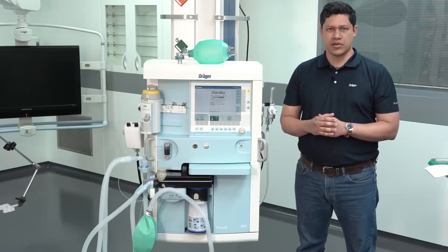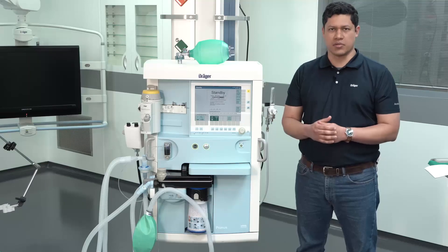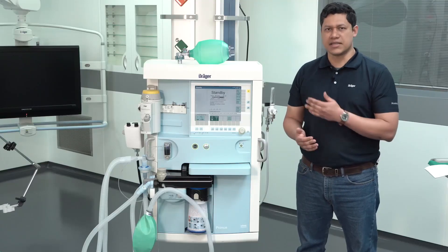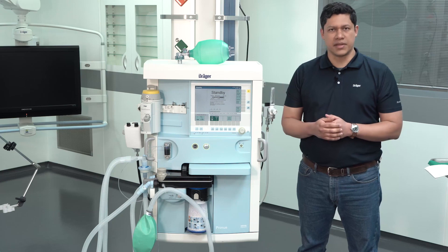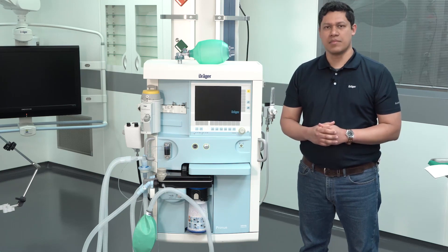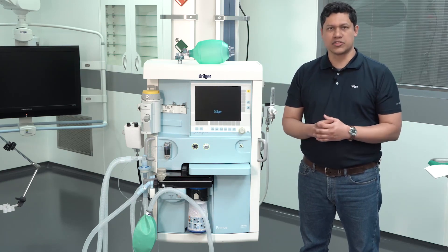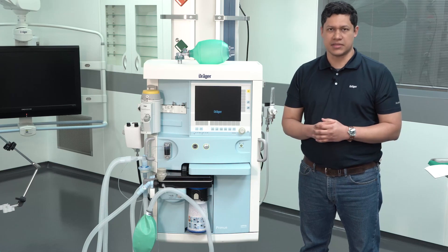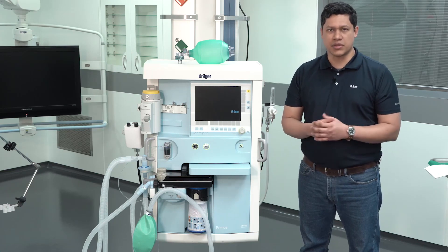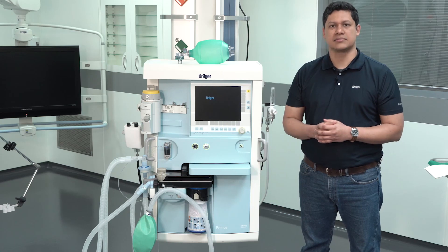The intention of this video is to provide medical personnel with an overview of the use of the anesthesia device for long-term ventilation. Medical personnel should be instructed on the use of the medical device and get familiarized with the functionalities of Draeger anesthesia devices.